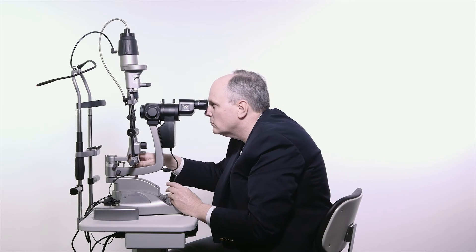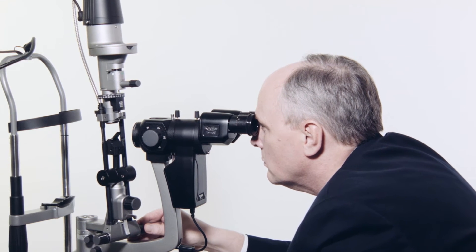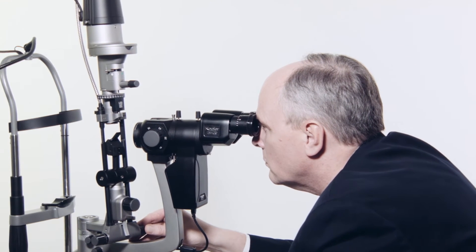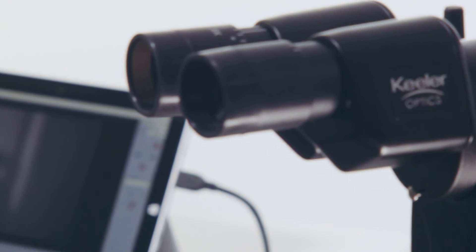The tower has the ability to tilt toward the user and positively locate at 0, 5, 10, 15, and 20 degrees. Keeler Capture software allows for image and video processing.